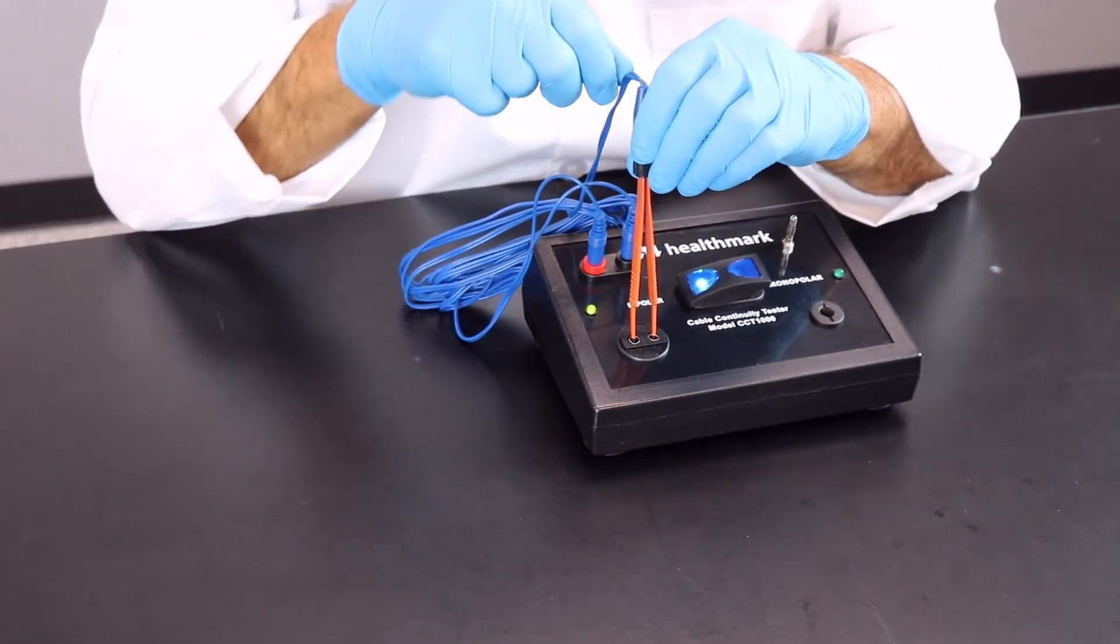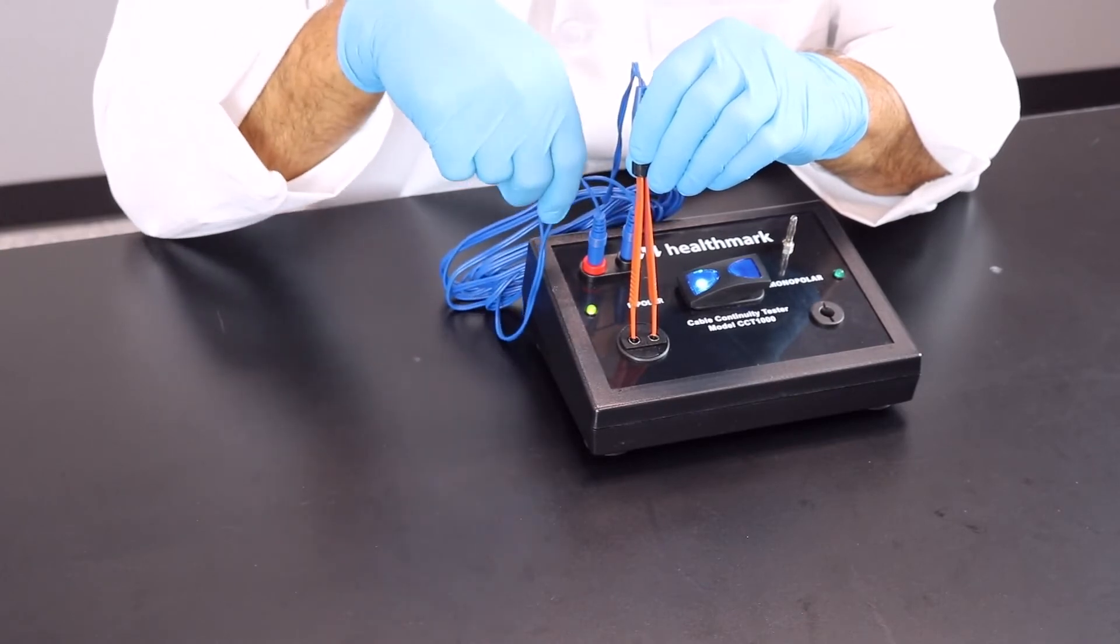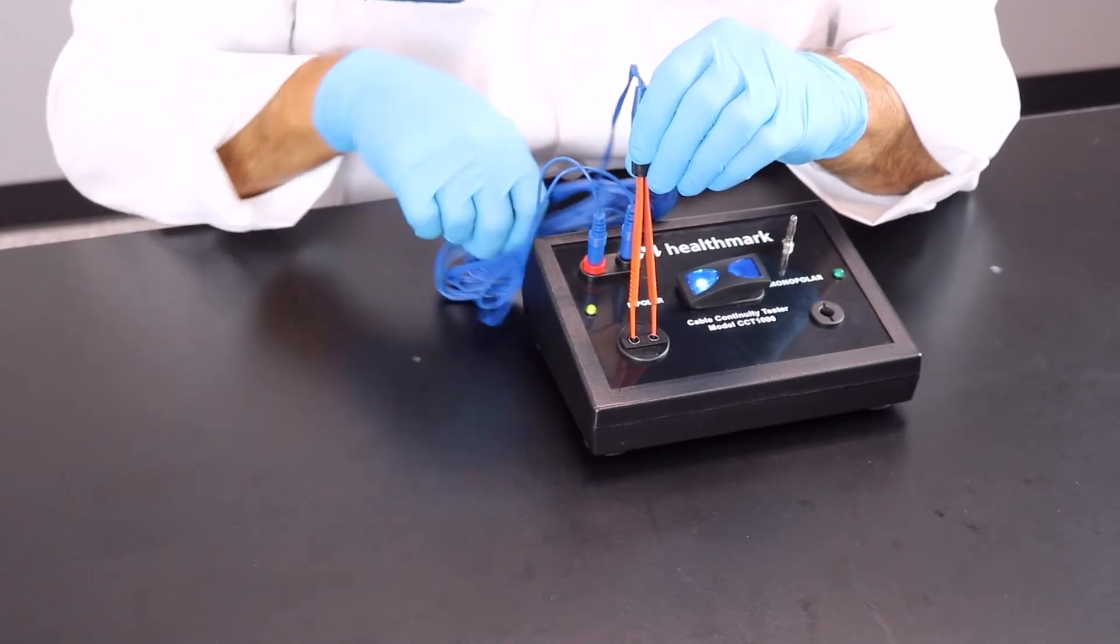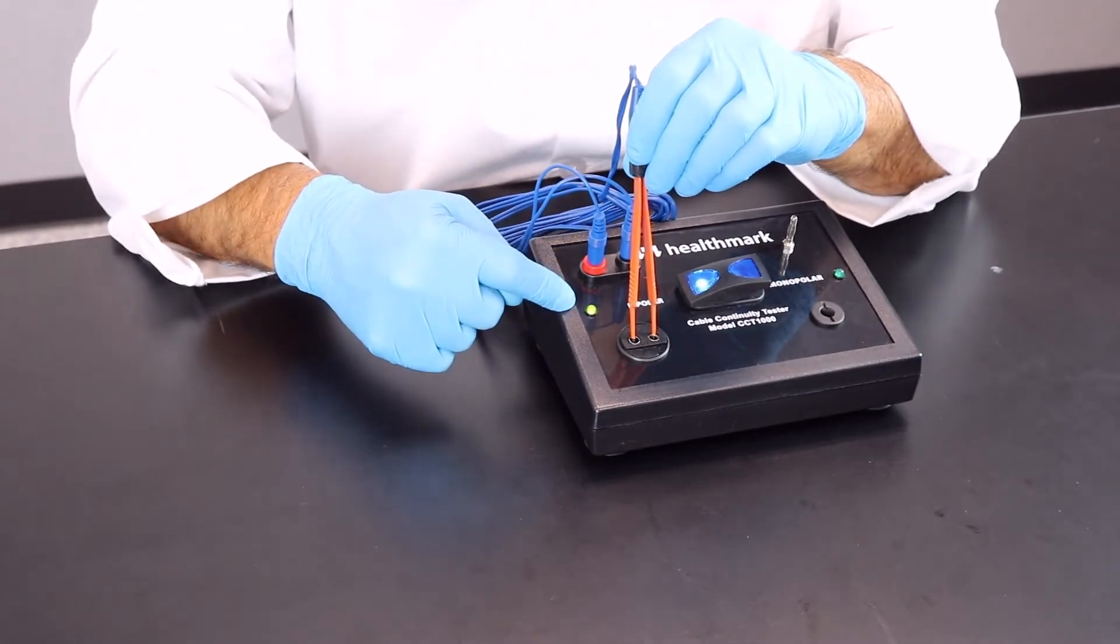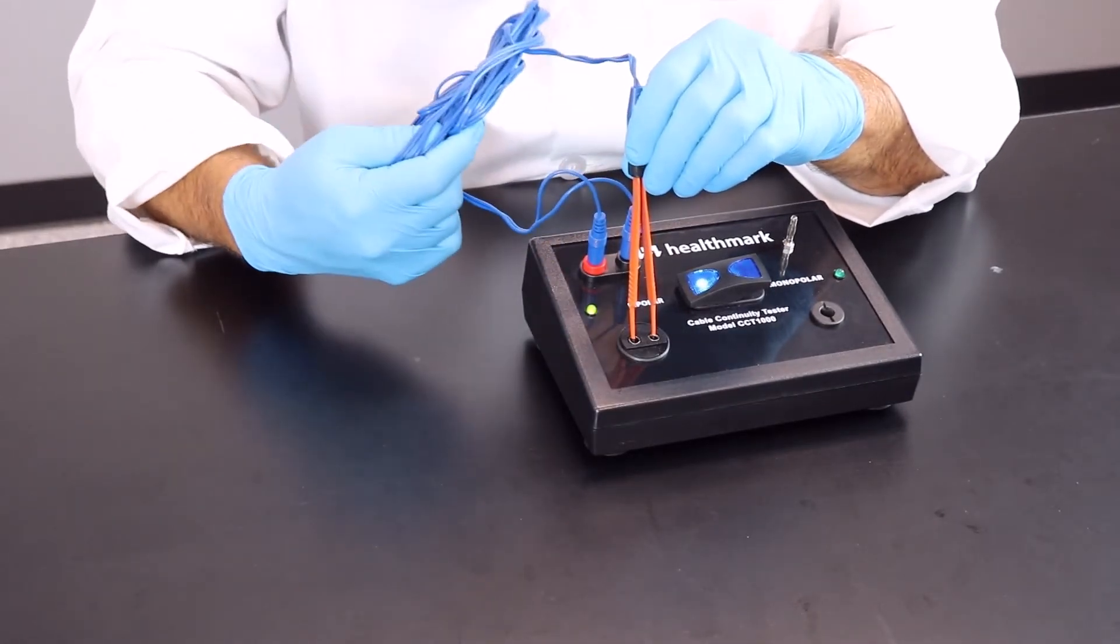You're going to hold it steady and you're going to wiggle the proximal and distal parts of that cable all the way through, making sure that that light doesn't flicker. So this cable is actually good.